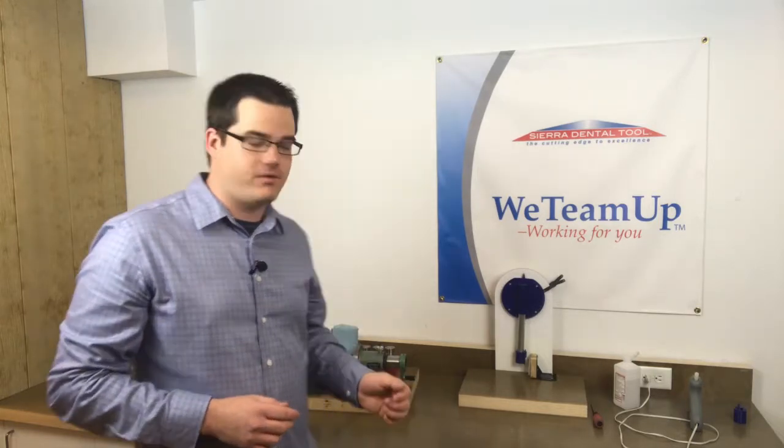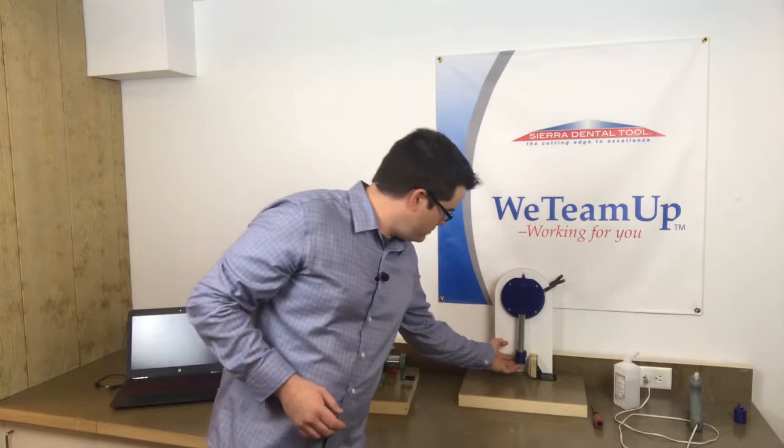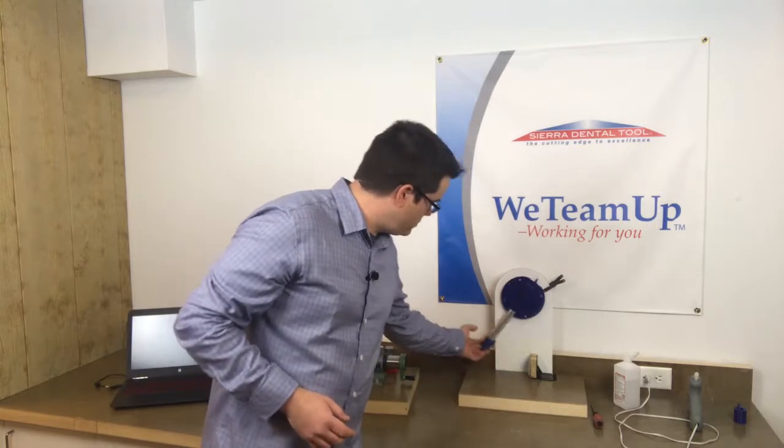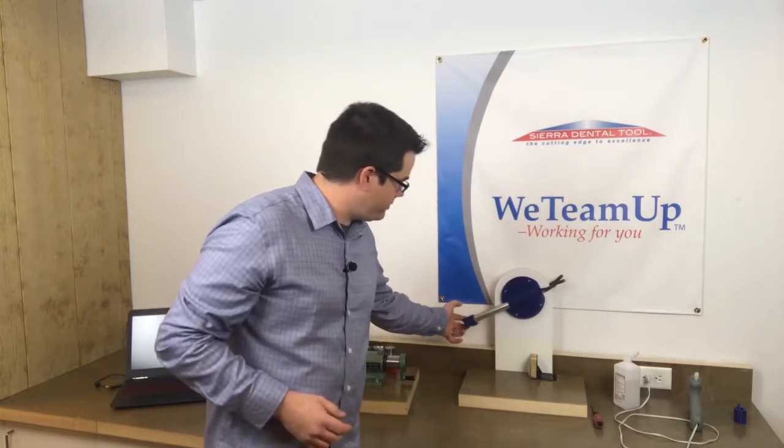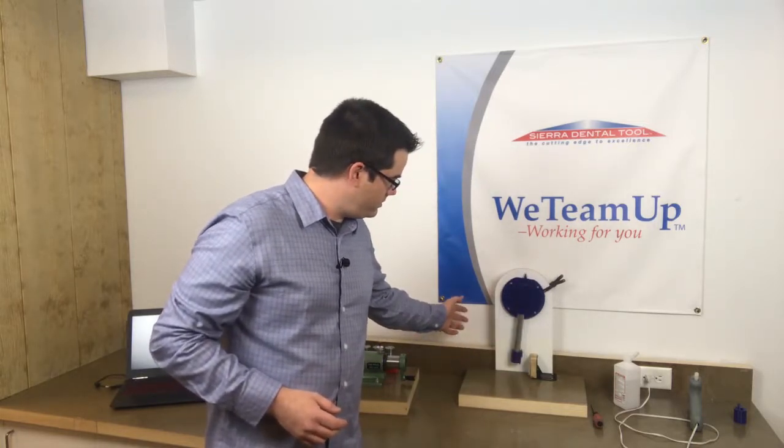For the third test I wanted to simulate what happens if the tool were to roll off the desk or get fumbled and dropped onto the floor. So in the machine we have a little sample of floor tile as the impact sample and another fresh tool. Let's see what happens. Back to the stop point and drop it. There it is.